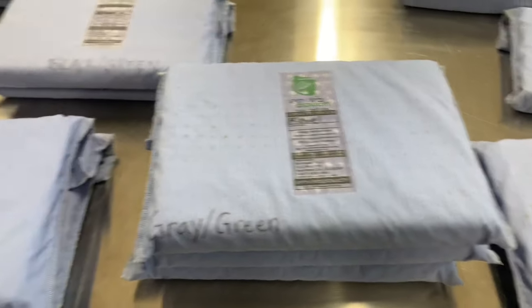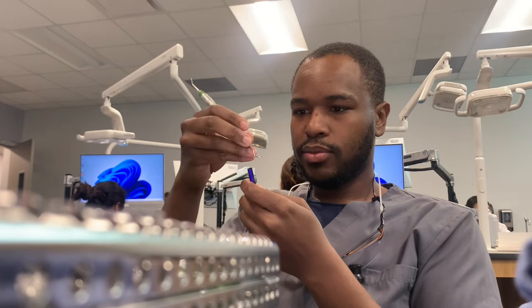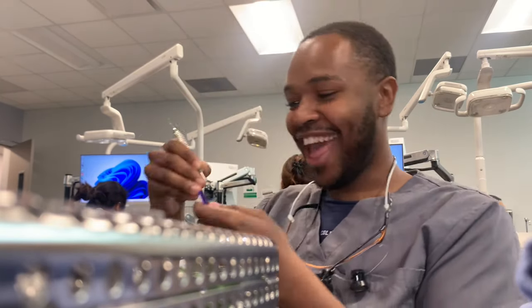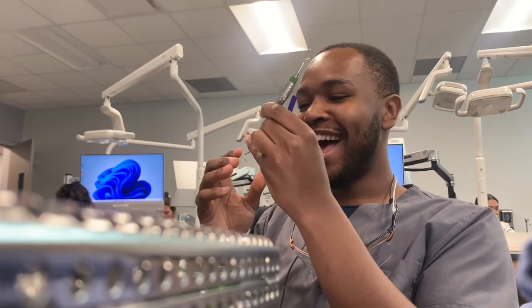Today we are sharpening our cassettes — so I've got a loops sharpener and my three cassettes. The Barnhart has this long shank — that's the thing about the Barnhart. She's got a long shank!